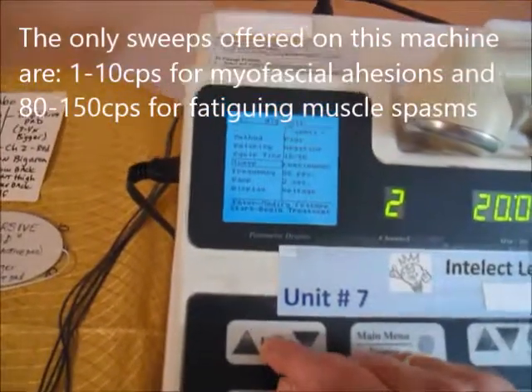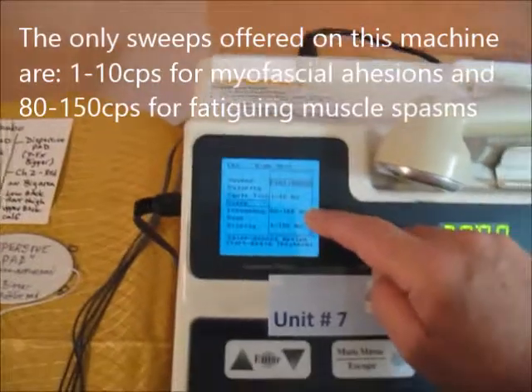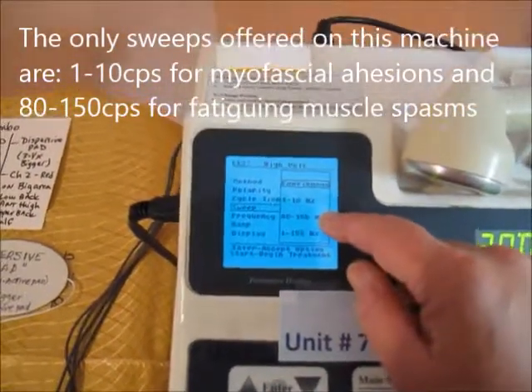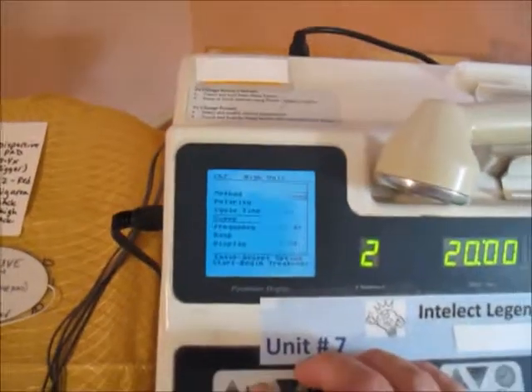So I'm going to hit this enter button right here, and you can see that it has a 1 to 10, which is the one that's good for myofascial adhesions. It has an 80 to 150, so it's not perfect. 80-120 would be perfect for fatiguing. And the last one we wouldn't use, which is a broad spectrum 1 to 150. So I'm going to keep it on continuous.